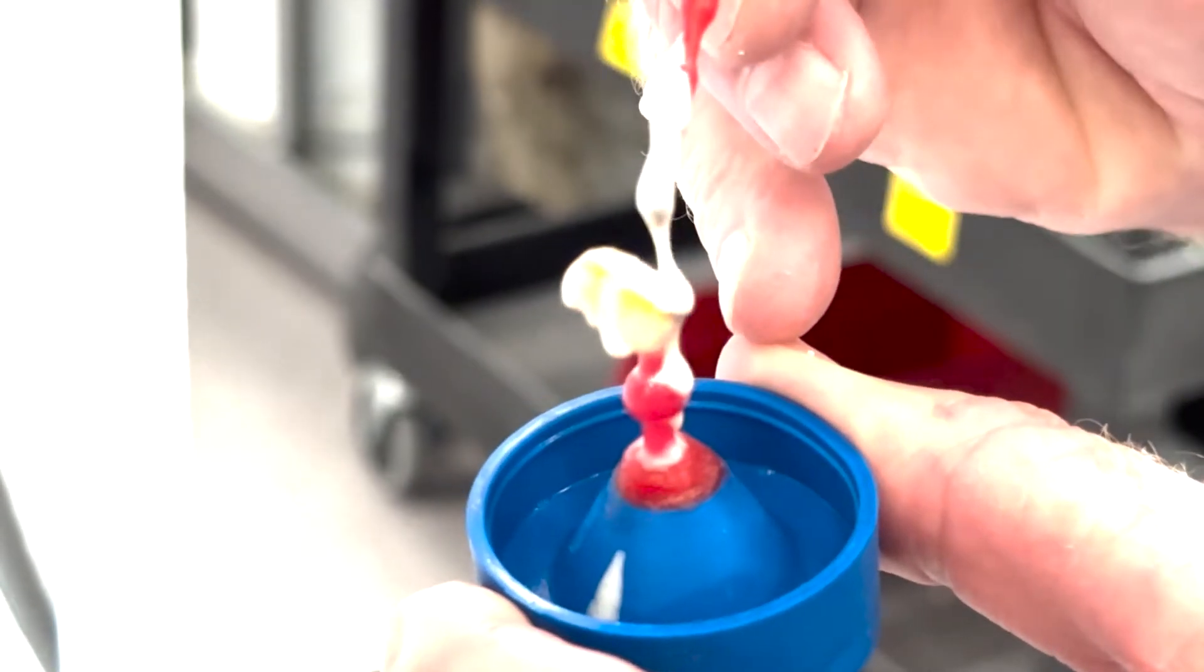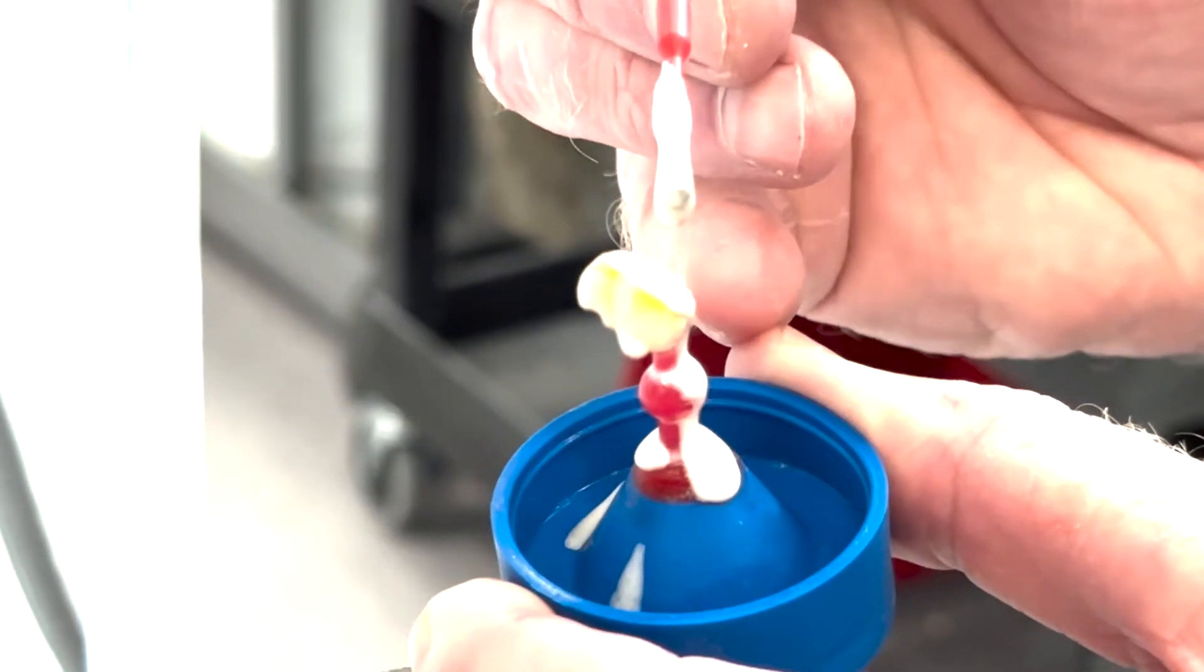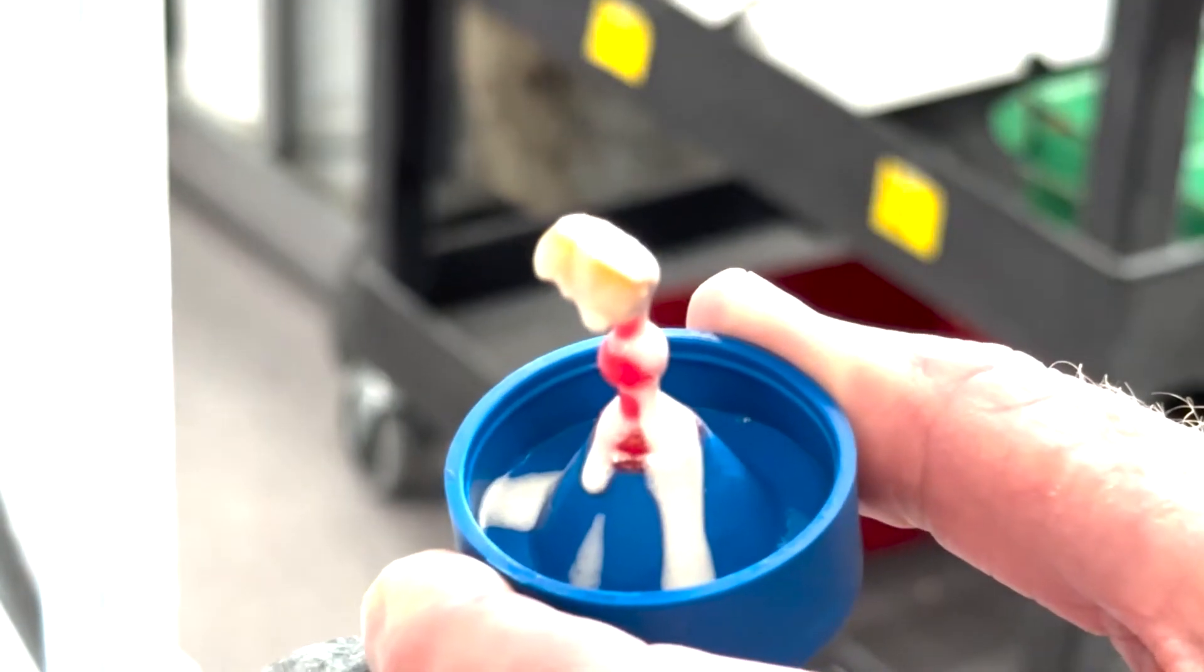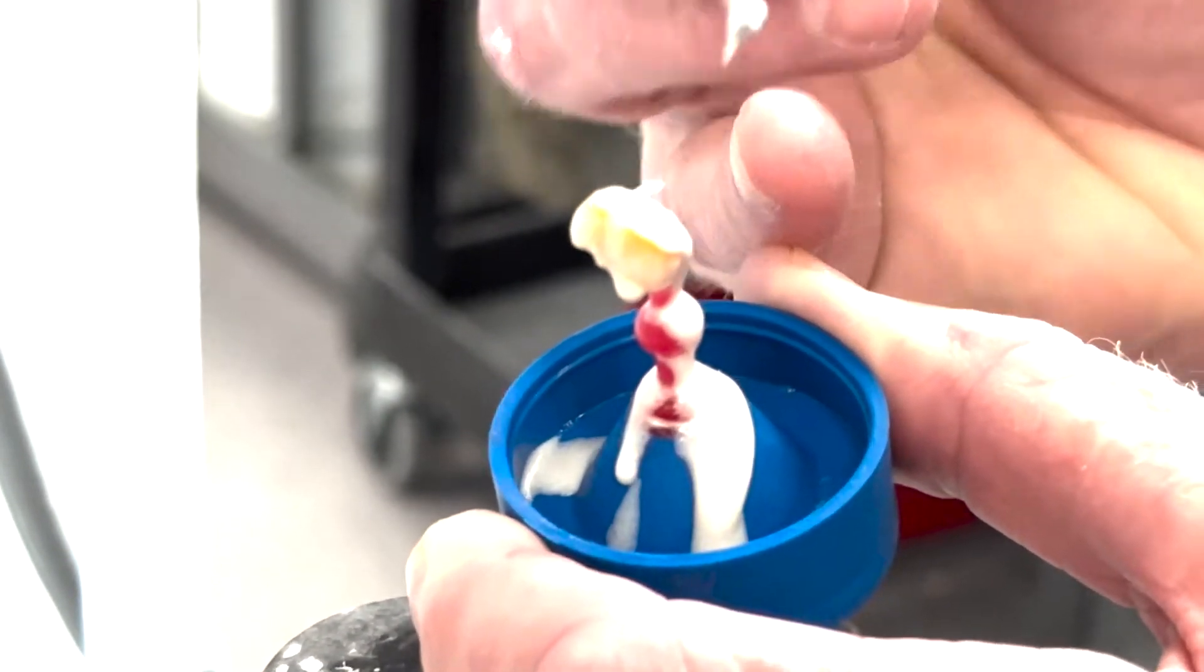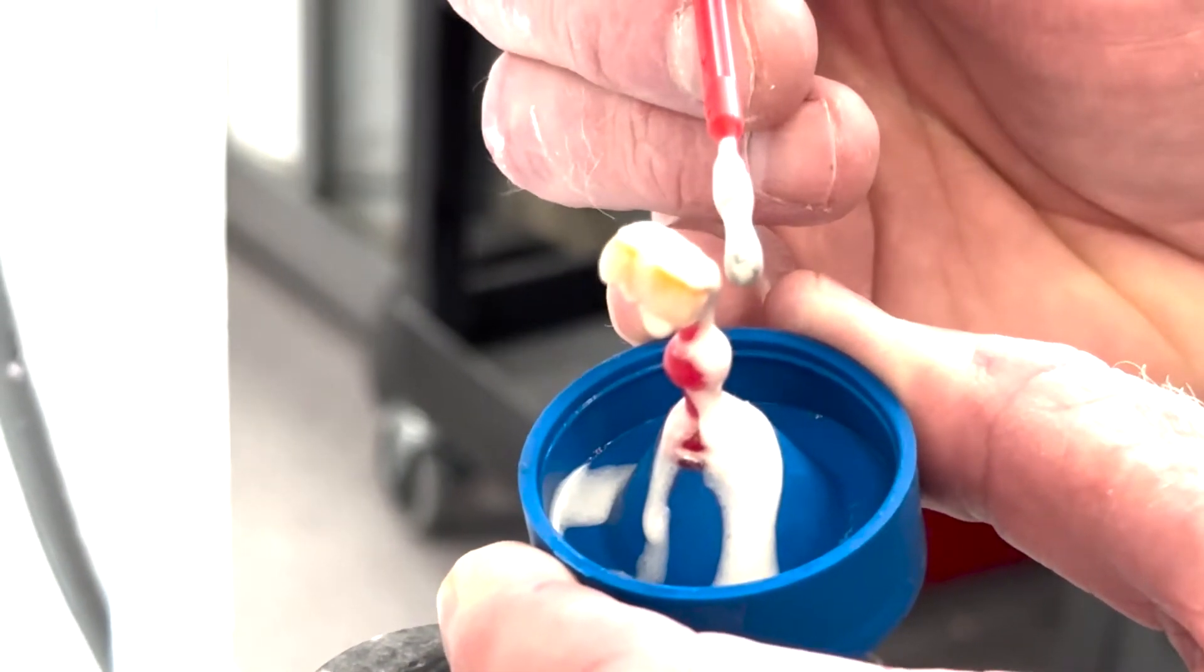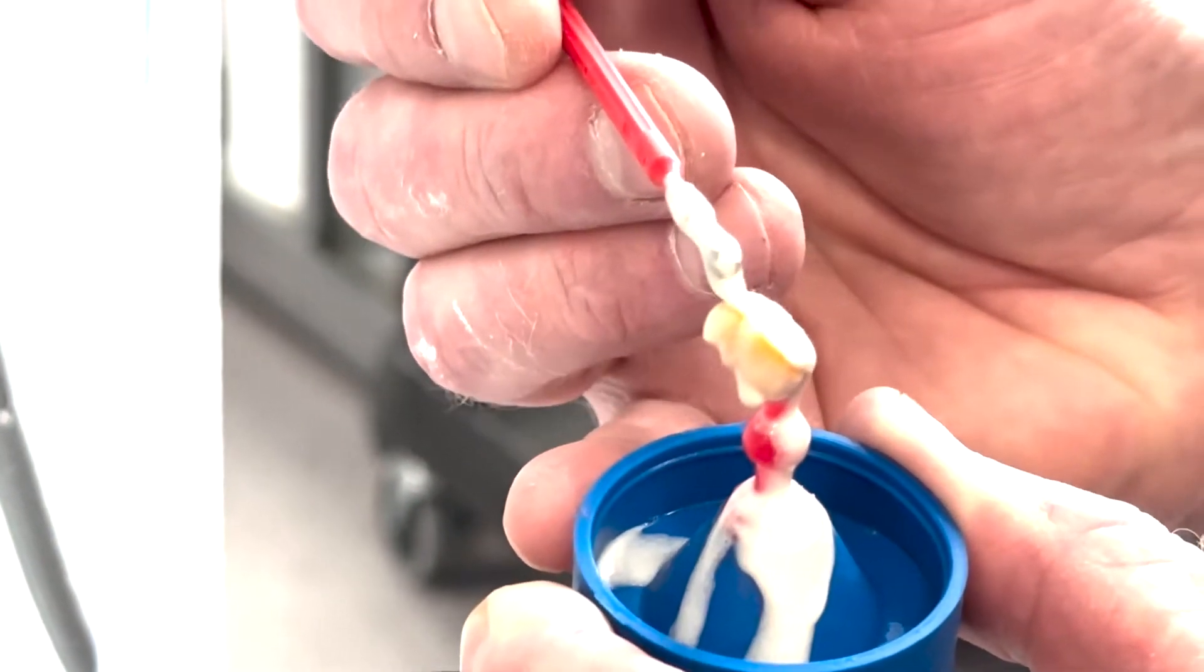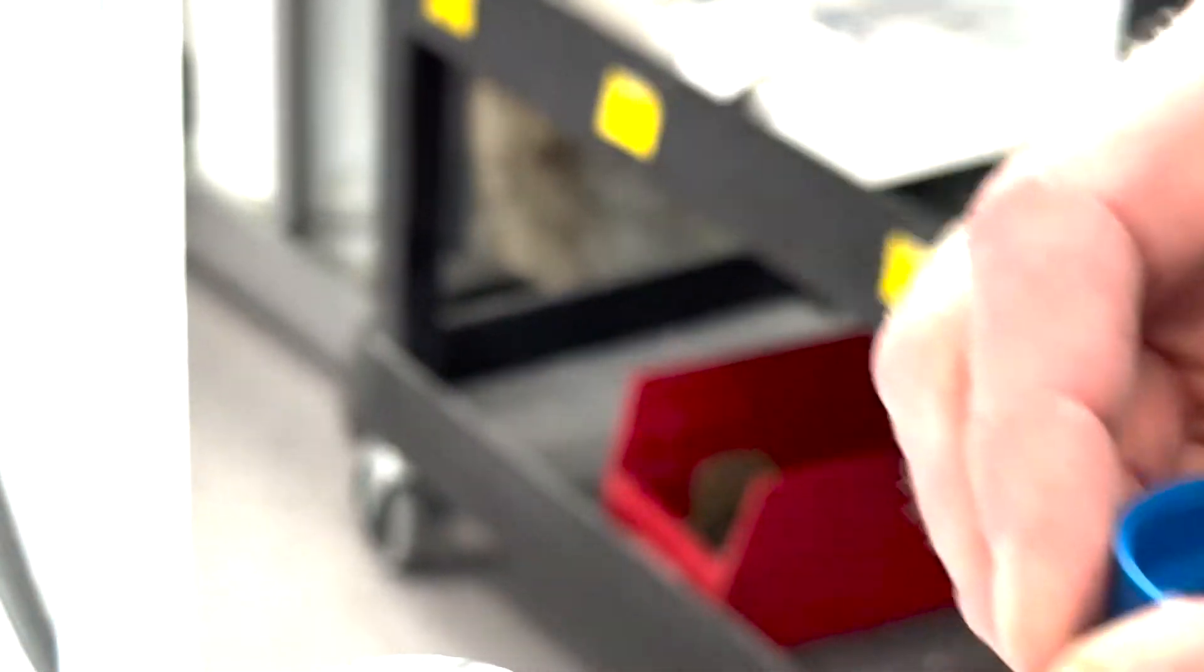So I'm mainly keeping away from the margins until right near the end. So I'll drip that in until it kind of starts to run over to push the surfactant out. Like that. And then when you're sure that you've got this thing full, if you can come back and just see that little bubble right there, it's real easy to get that kind of stuff. So now I'm just going to kind of go around the margins to make sure I'm not touching them. I'm drizzling the material over them, just to make sure that there's no bubbles that are going to get caught at the edges. Does that make sense? Like that. I want to get rid of that bubble too. So now I think we're good there. Fully up to the margins everywhere. I could even put a little more. Like that. I'm not touching the margins. So it's important to kind of get that down.